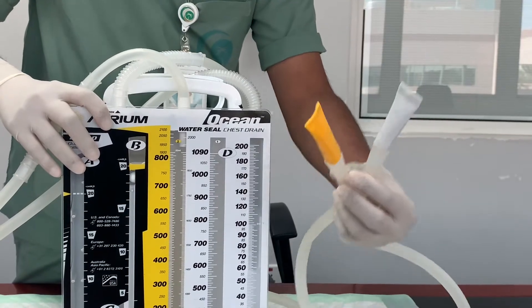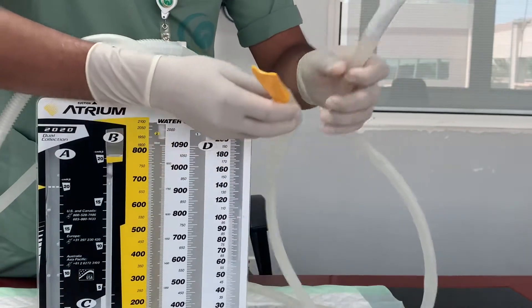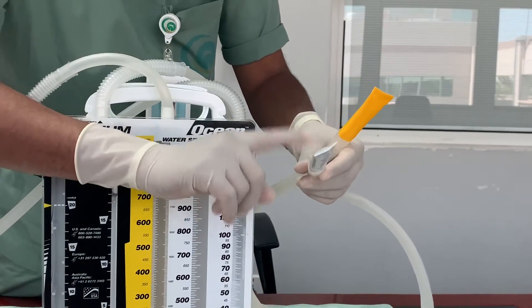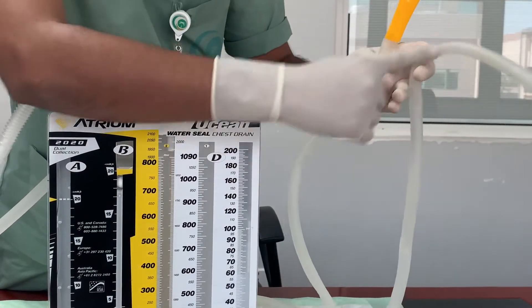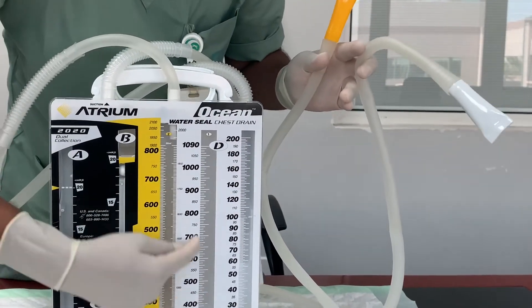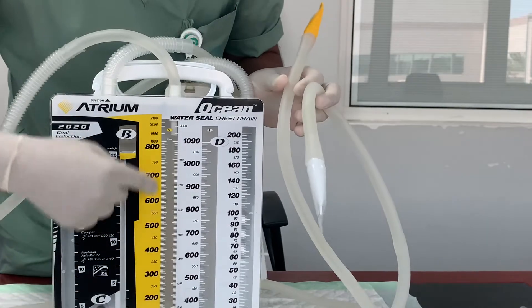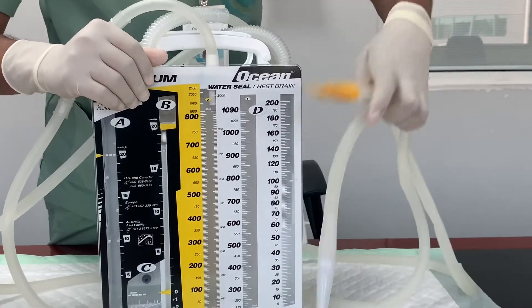You can see two color coatings — one is white and the other is yellow. There is no confusion with the drain because of this color coding. If you connect the white-colored tube to a chest tube, the drainage will be collected in the white-colored chambers. If you connect the yellow-colored tube, the drainage goes into the yellow-colored chambers. That is the only significance of the color difference.